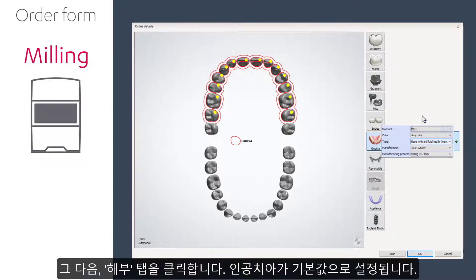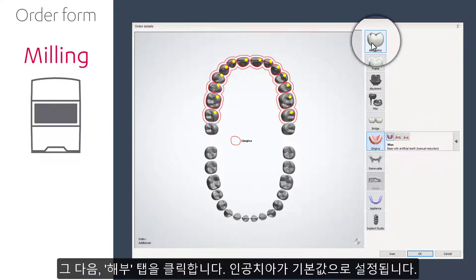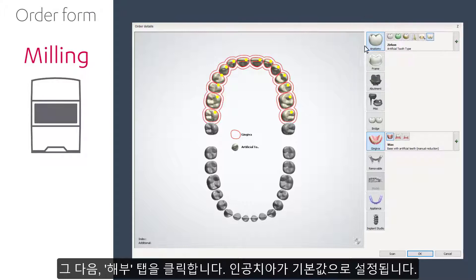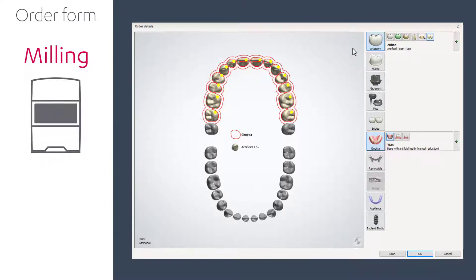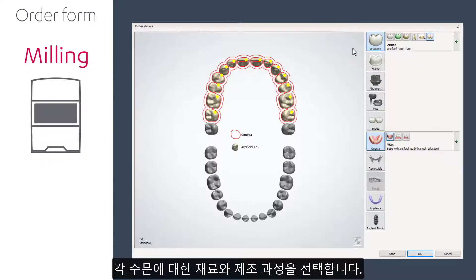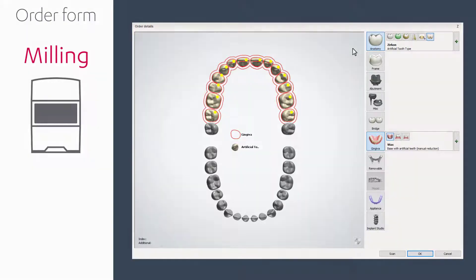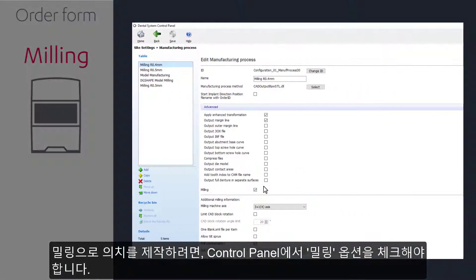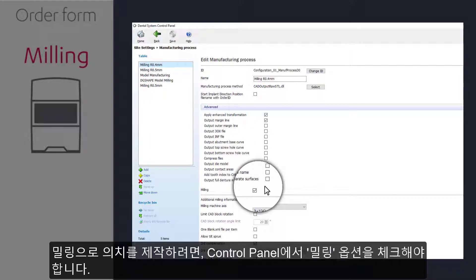After that, select the Anatomy tab. The artificial teeth will be selected by default. Choose the relevant materials and manufacturing process for each element. Keep in mind to have the milling checkbox in the control panel enabled when you plan to mill the denture.